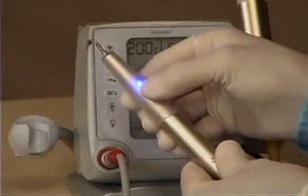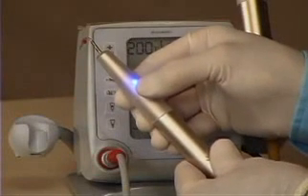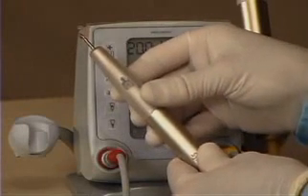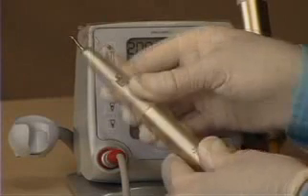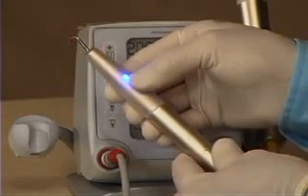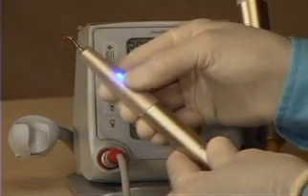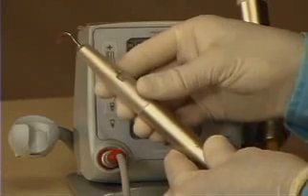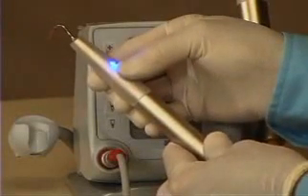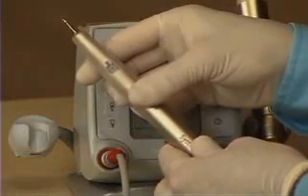The button has a little light that shows when the heat is on, and after 4 seconds — even if you keep the button held — it automatically turns off. There is a little click you will hear at 5 seconds, and at 10 seconds there are 2 clicks, telling you when you have held a sustained condensation force long enough. If you hit the 4-second mark and want more heat, simply retouch the switch to get another 4 seconds. This is a nice safety device — new users can't add too much heat and warm the root to a dangerous level.